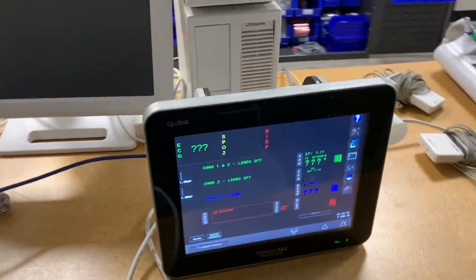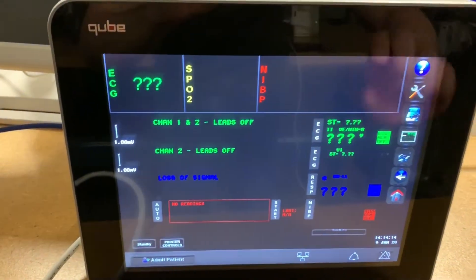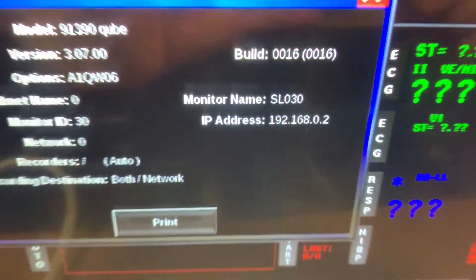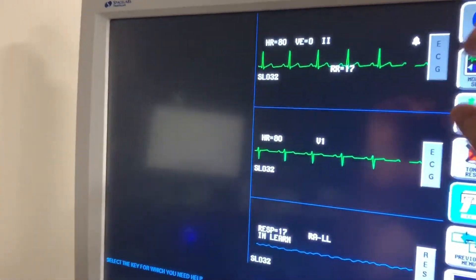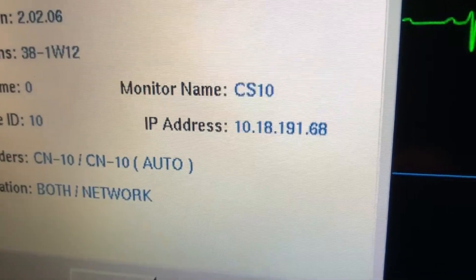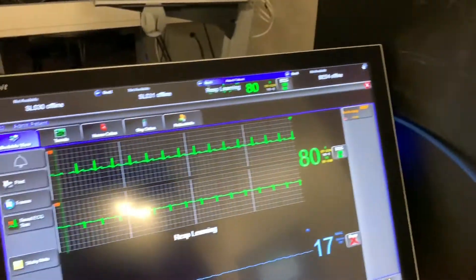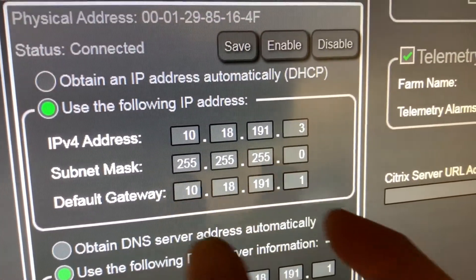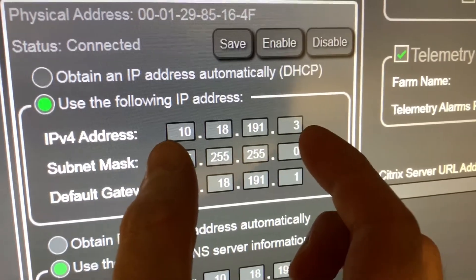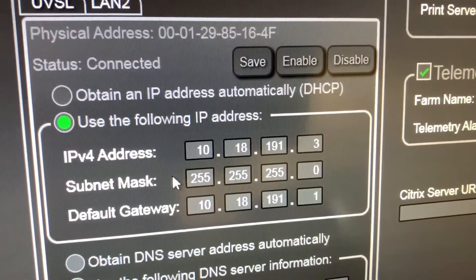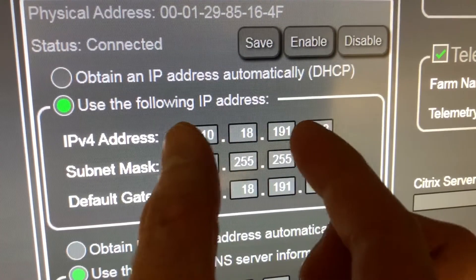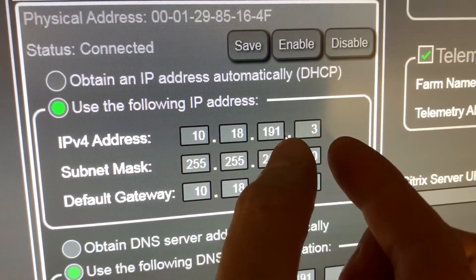Over here we have our ECG that we set the static IP address on earlier. Right now this is using an IP address that does not match the rest of this network. So if I go to this ECG, the IP address is not the same. If I go to our central station, settings setup, then network setup — this is the network it's supposed to be using. The subnet mask is the same, but you can see the actual IP address is different. In order to have a valid IP address, we need it to match this network — at minimum these first three numbers — and then a valid number in the last box.